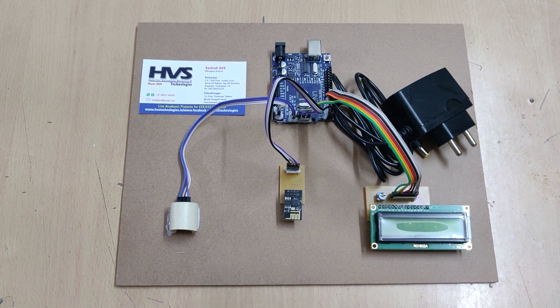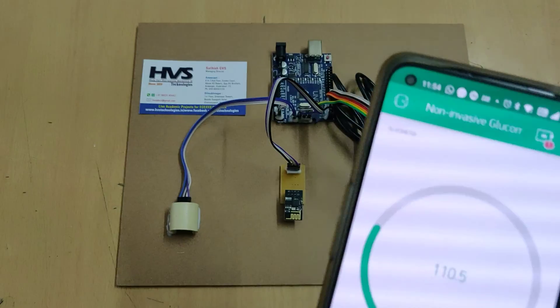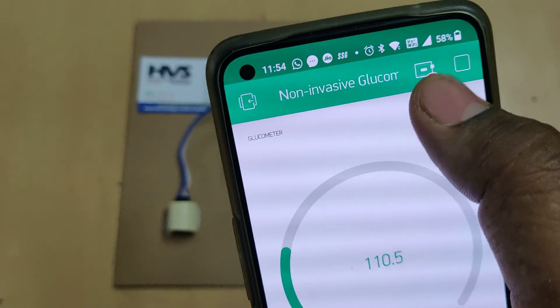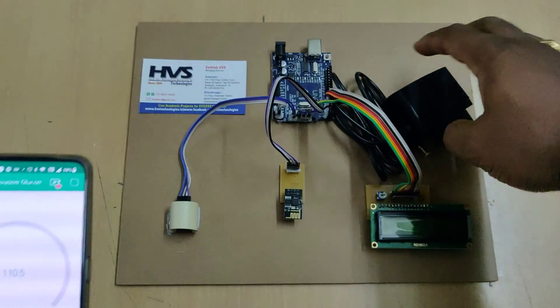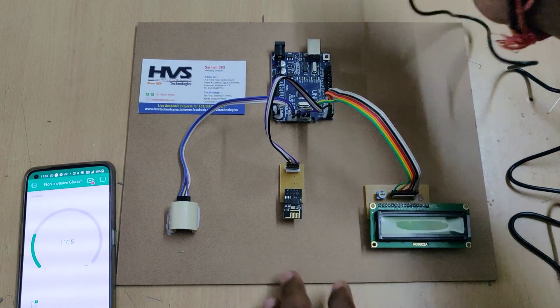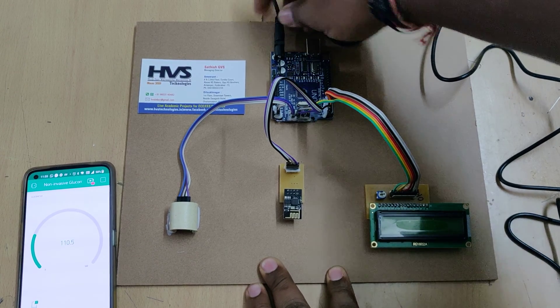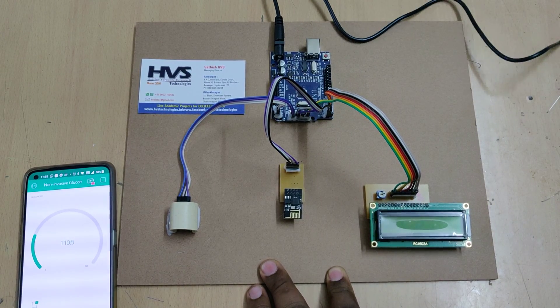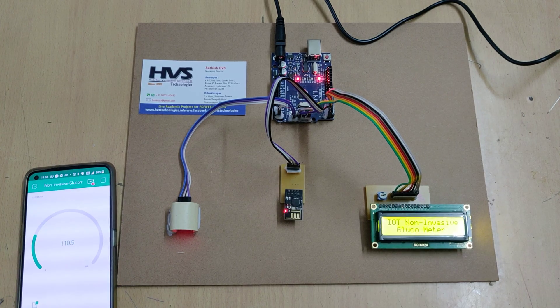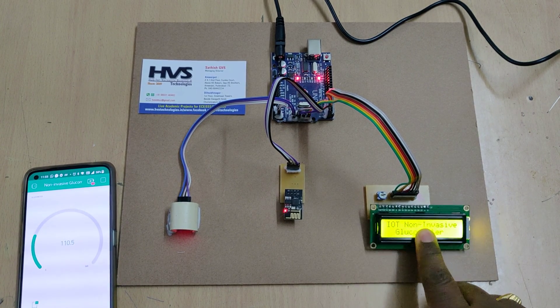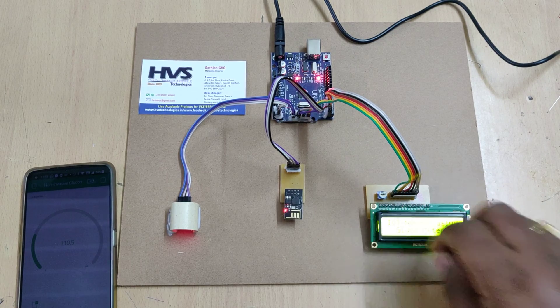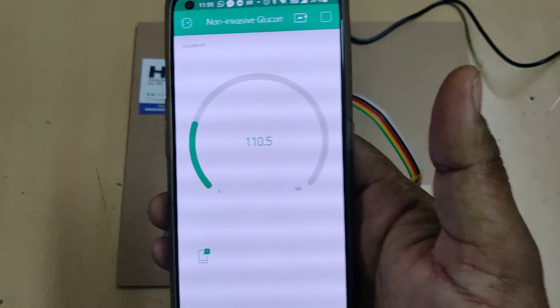Enable the hotspot and enable the data. After enabling the hotspot, you can see the device is offline — that's why there is a red mark on the icon. Once you turn on the power supply, you will see one device connected on your mobile phone. Connect the adapter and turn on the power supply to the system.